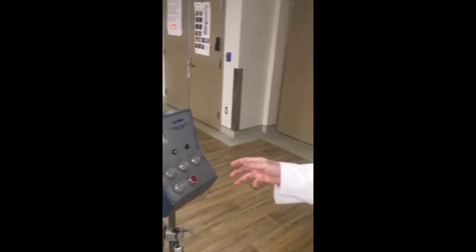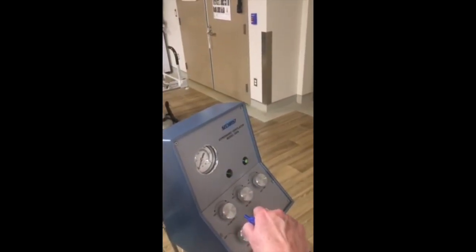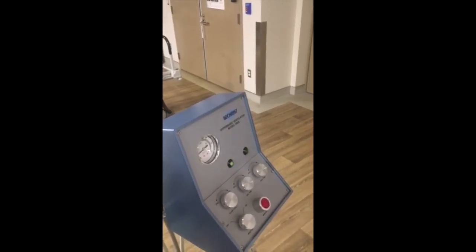And in doing so, we have 20 breaths per minute with a 3-second cycle length, and 500 mil tidal volume, giving 10 liters per minute. Good. So what we did was we ended up taking the inspiratory time and we shortened it so that we allowed the ventilator to essentially operate quicker.